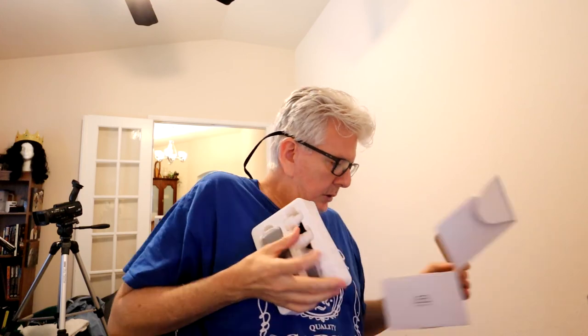This is apparently a Leel CPAP cleaner, and their website is leelpro.com — L-E-E-L-P-R-O dot com. We're going to open this up — this is the first time I'm opening it. There's a little carrying case, user manual. Oh, this is a small little thing. And this is all there is to it. This is the cleaner. Oh, this is nice.